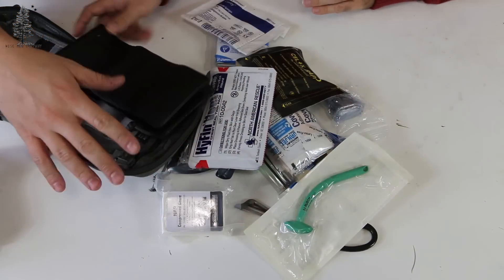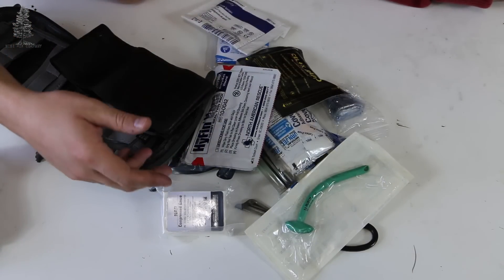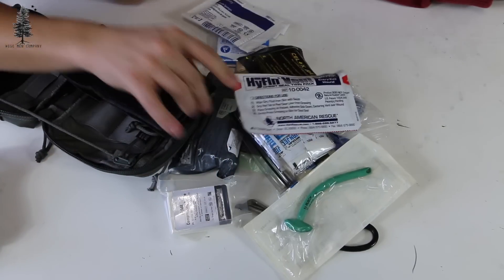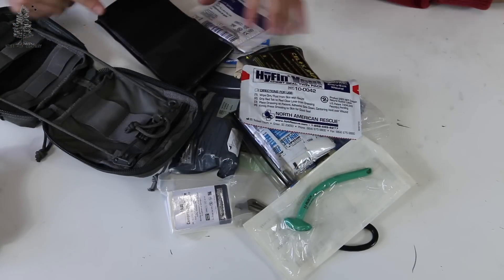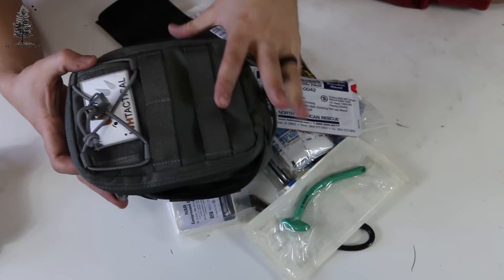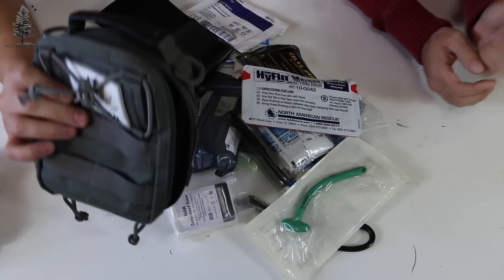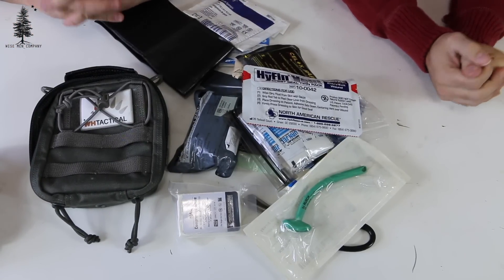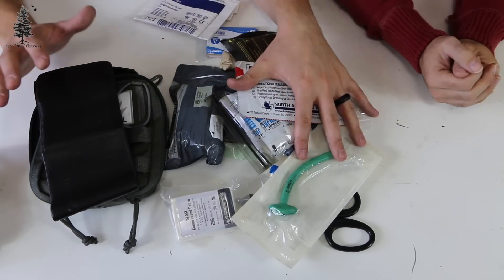What I like about this kit is it's complete — I don't have to shop around, buy a kit and then add things after I get it. No, it is a one-stop shop for all your trauma needs. It really is. Even down to the splint and stuff like that — as Noah said, you don't see these in a lot of kits, but they found a way creatively to pack this all into one tight compact kit. And it's really great for the money — you are getting a lot of stuff for an insanely good price. $89 I believe for the basic kit and $139 for the advanced kit. This is a great price for all this gear in a med kit.